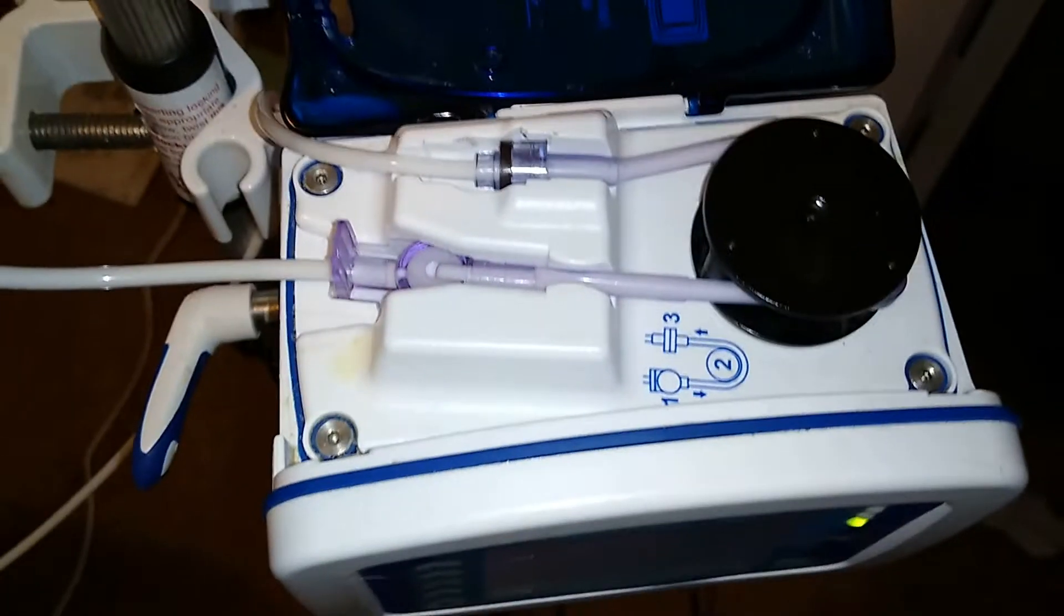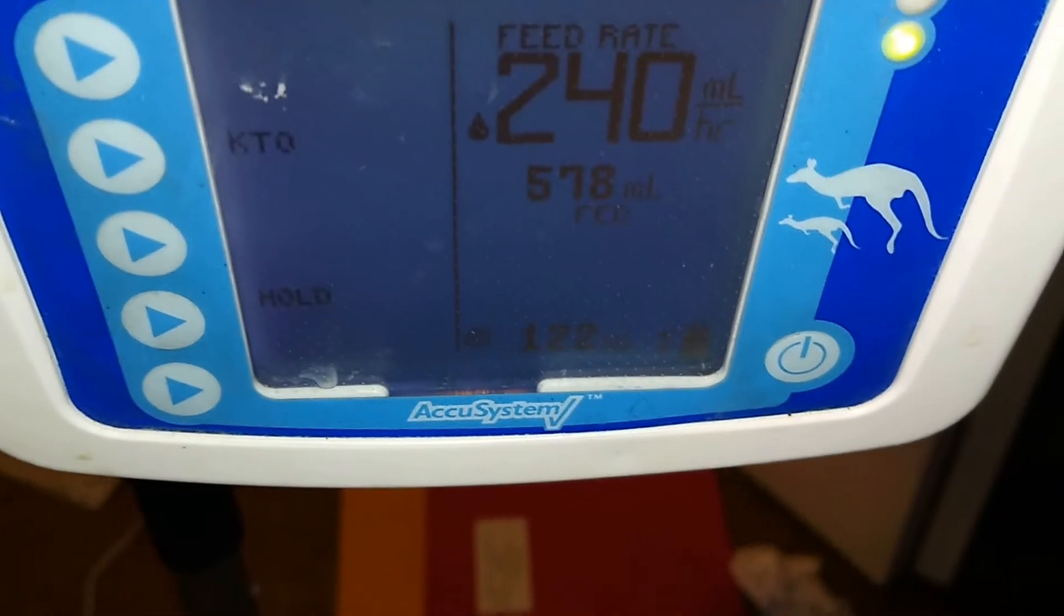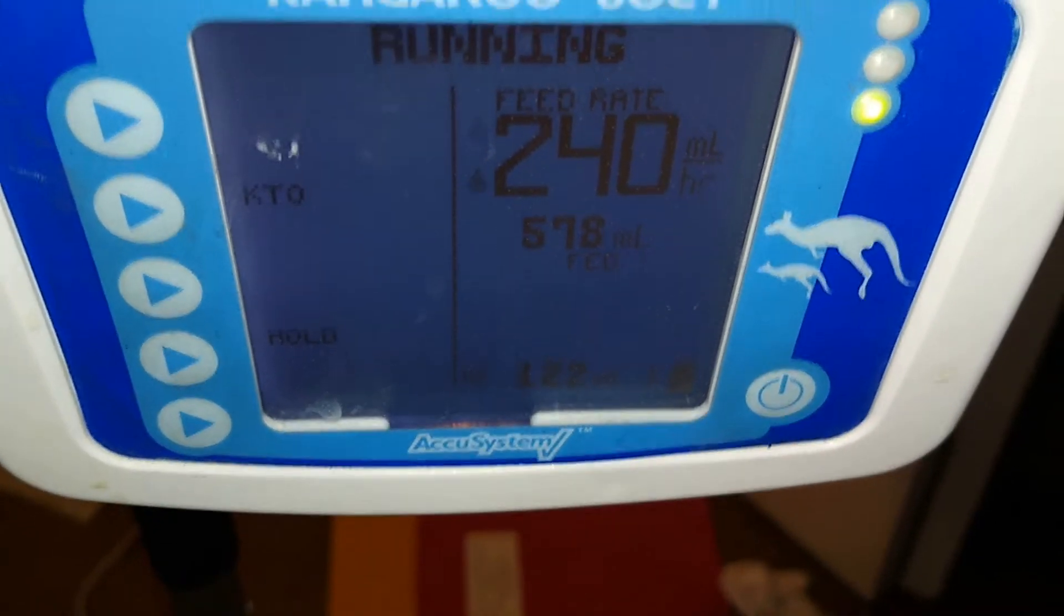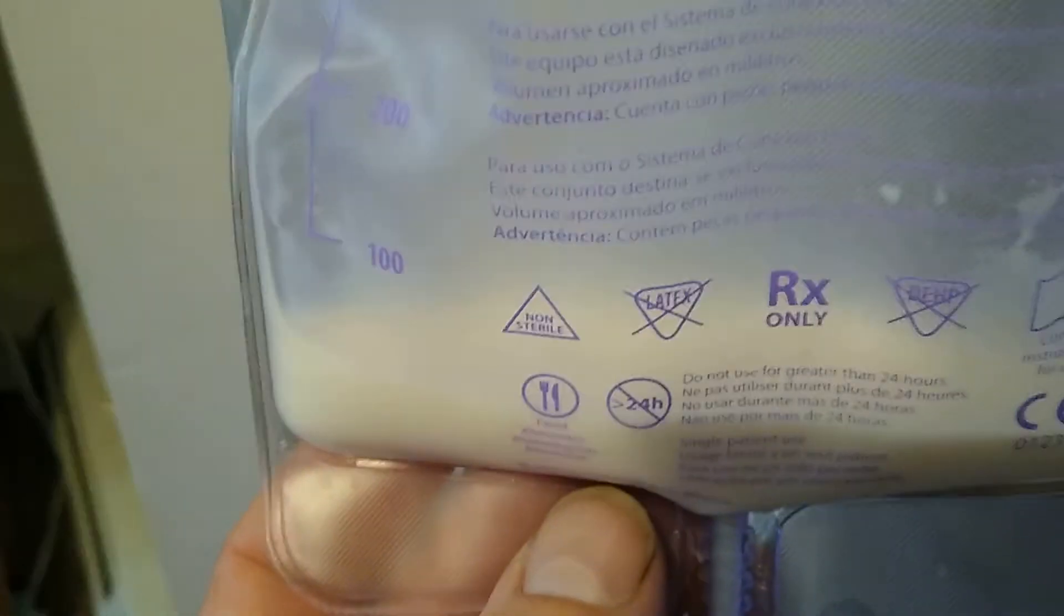And I'll make sure to show you that it went all the way through and got done. All right, as you can see it's been running for a while, no issue.